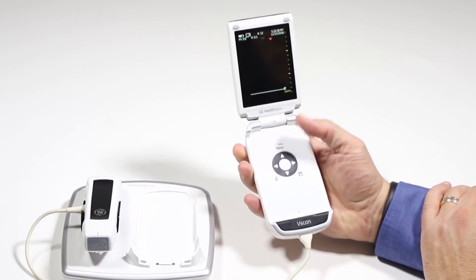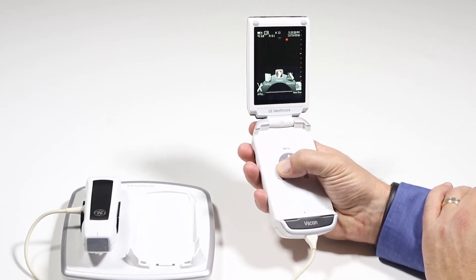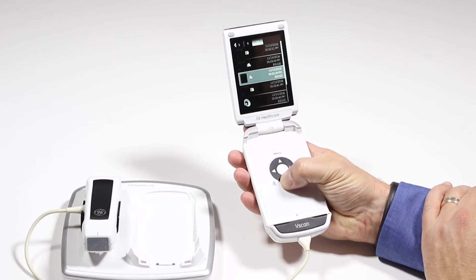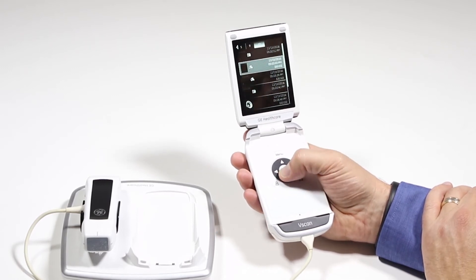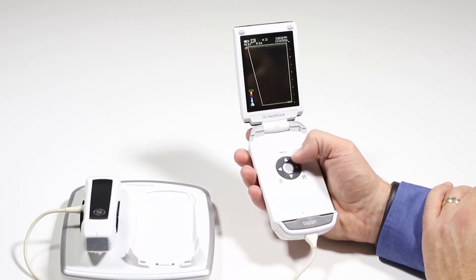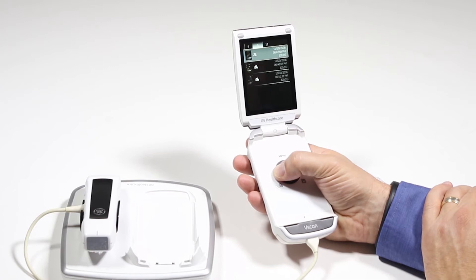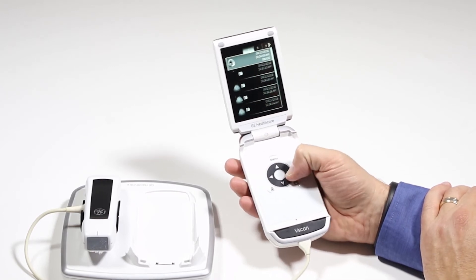To review recordings without connecting the system, go to gallery — press menu then left, go to gallery, and here you can view all images by scrolling up and down. Here's the voice recording, and if I click the center, it shows the images stored. Click menu to go back to gallery, then click left and right to go to the various patients stored on there.